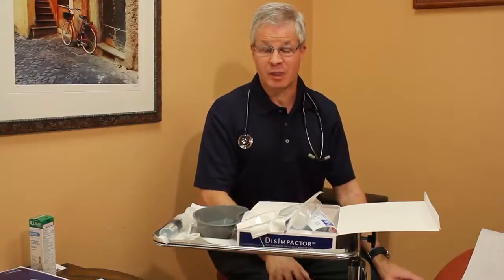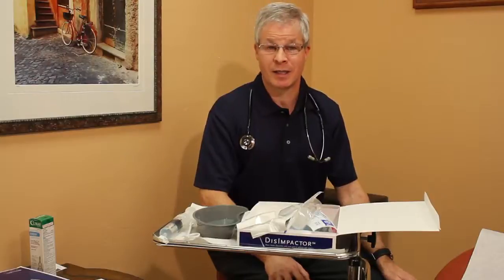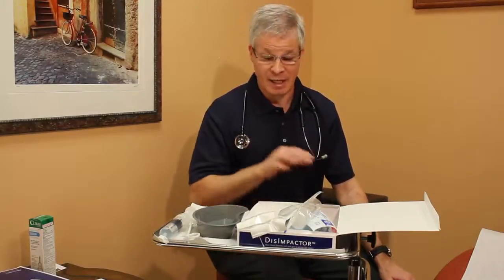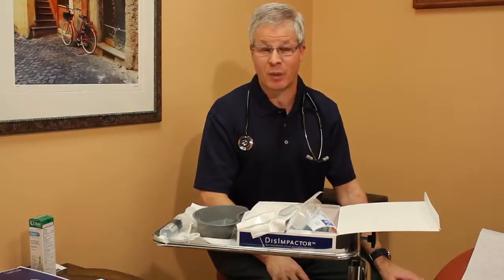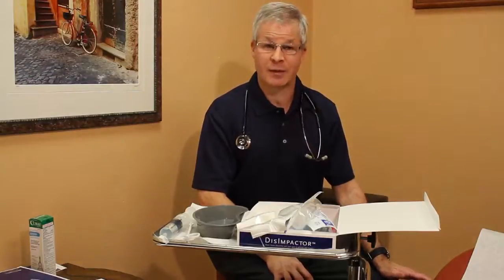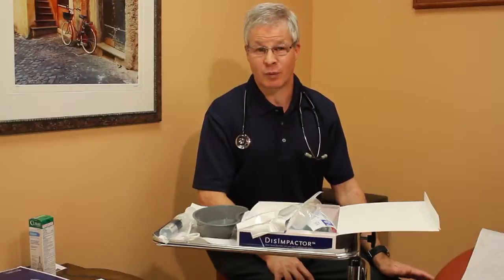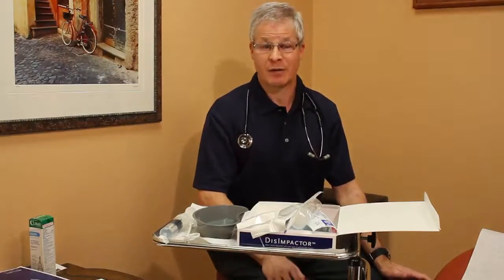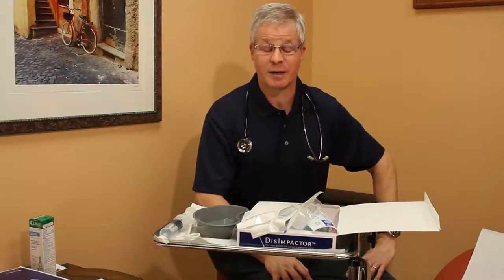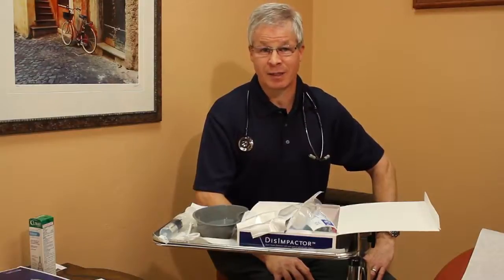If this procedure has not fully relieved it at this point, then some patients may require an additional enema. And again, that's your choice as to which fluid to use, but another DisImpactor device would likely not be required. The enema could be given in a traditional means. If following that it's still not effective, you can use another DisImpactor device to aid in further removal. The combination of these techniques, particularly that first round of enema fluid which is required, will lead to the relief of most patients' fecal impactions.